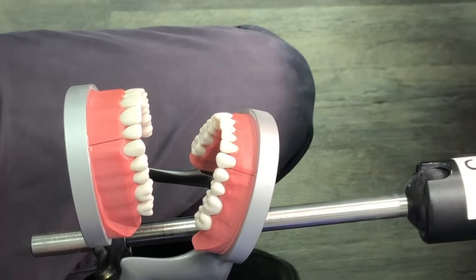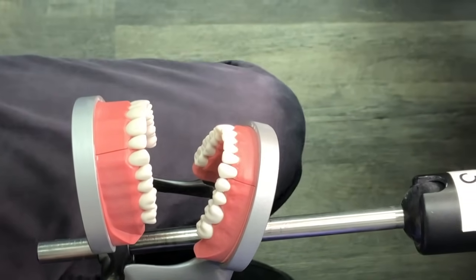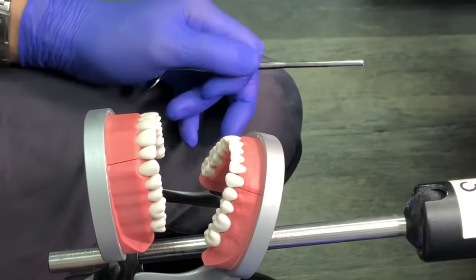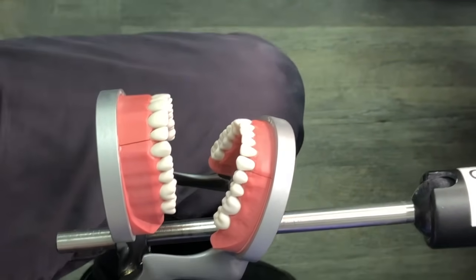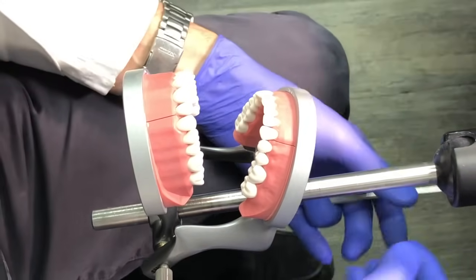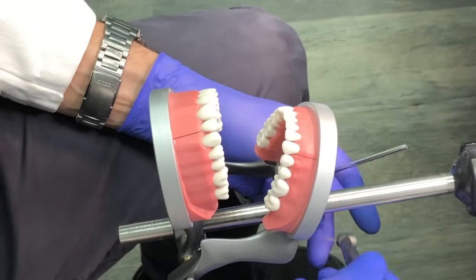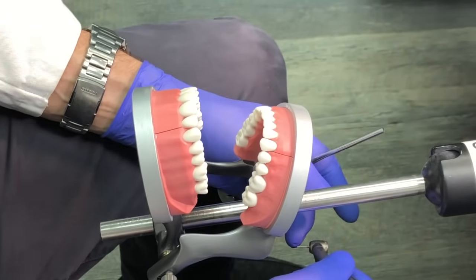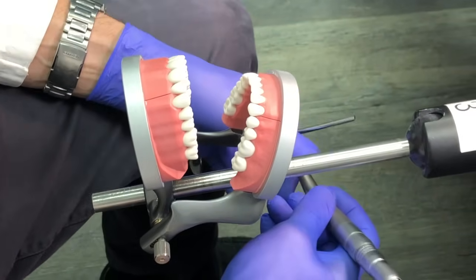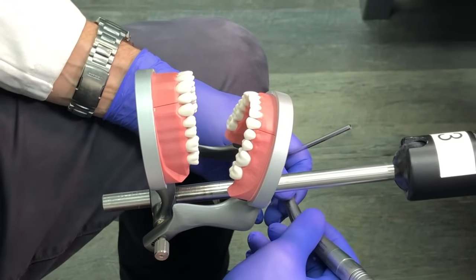Doing the occlusal is really easy, but some parts are quite hard. It's like climbing a mountain — there are flat easy parts and steep parts. You don't stop at the steep part and wonder if you'll make it; you go in knowing those challenges exist. A lot of the frustration with using a mirror on the mannequin comes from being shocked at how difficult some parts are, because on the bench it's all easy. On the mannequin, you're restricted, and some parts become quite difficult.